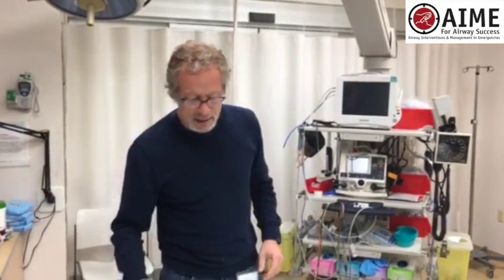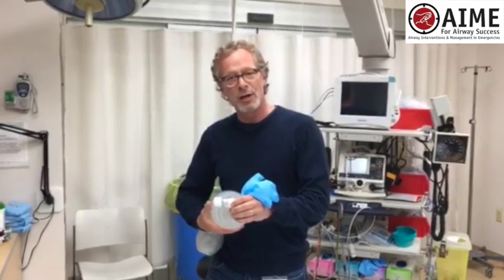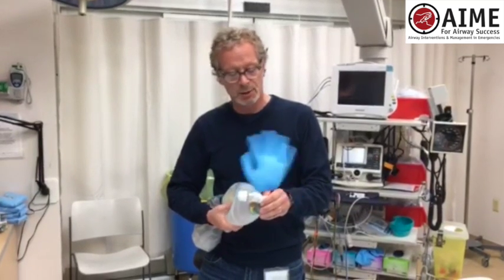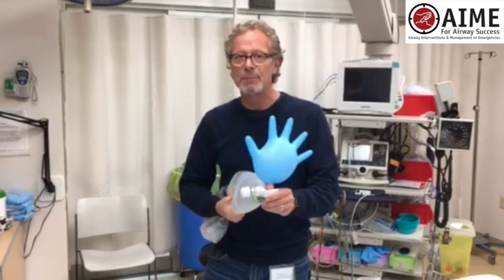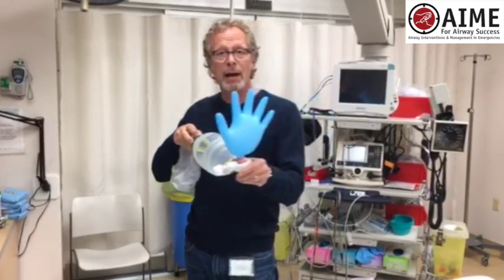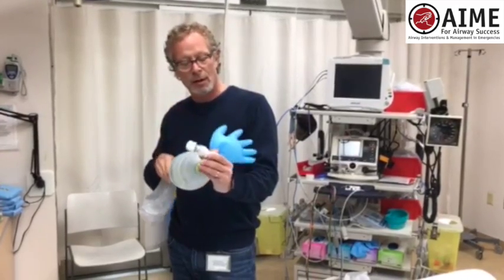Now when I take the same glove — I've modified it slightly to make it more dramatic — and I've dialed this up to somewhere between 10 and 15, we're going to see the effect of PEEP. You don't see any collapse of the alveoli; they stay open progressively. Even after I stop bagging the patient — no fingers, just giving you a high five — PEEP's the way to go. Use it.